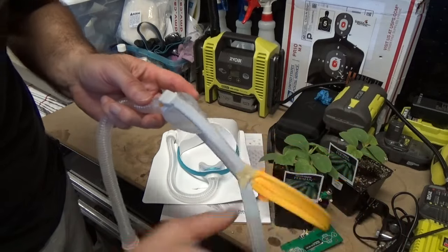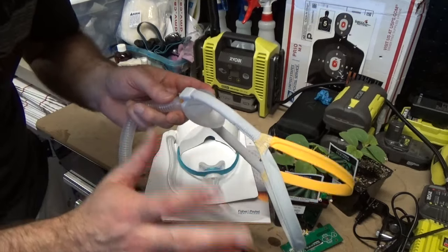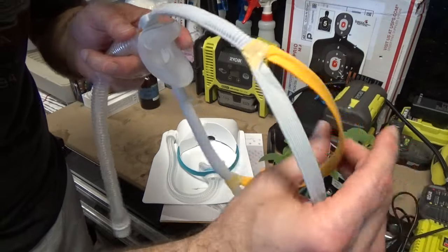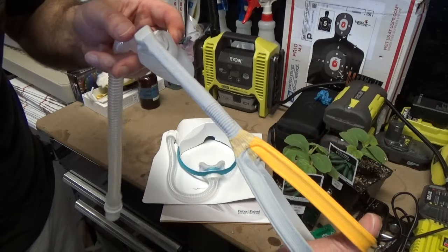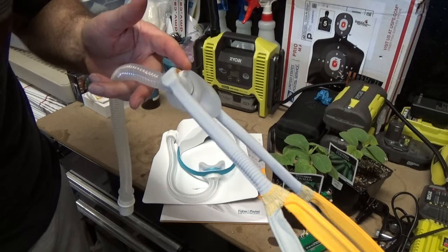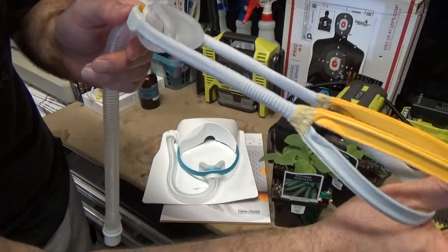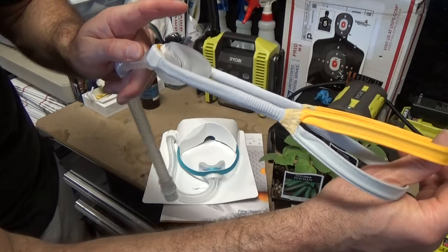This is a part that's amazing — there's no Velcro at all. I think every other mask I've ever seen, with the exception of the Bleep DreamPort and Bleep Eclipse, has some kind of Velcro on them. Look at this, how it stretches. Listen to the sound. The feel of this is crazy. If I pull it out like I'm putting it on my head, it goes easy — there's a little tension, but it goes fairly easy. Then it provides a lot more tension to ratchet it in. So when you put it on, it gives you a nice firm pull into your face. If it's not enough, you can force it in a little more and it's going to ratchet down and hold.